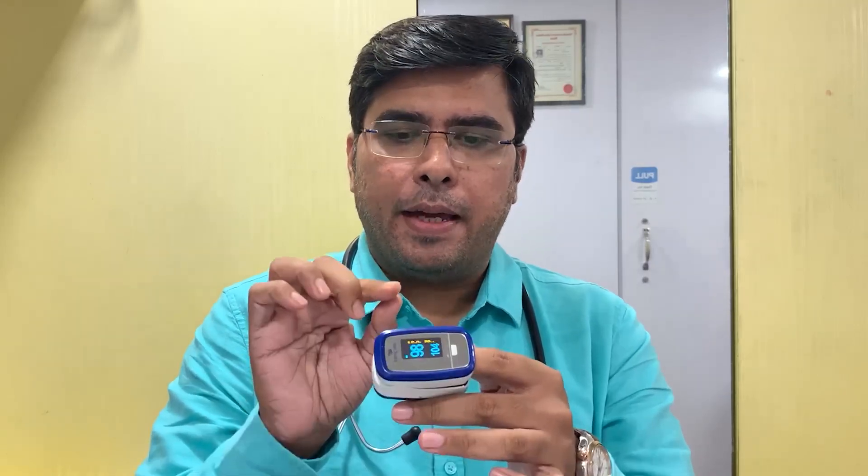How does the pulse oximeter do the reading? The reading is very similar in each case, and we should be able to get that reading with the doctor's guidance. The pulse oximeter is simple to use. It applies to SPO2 or pulse rate — these are the two parts.